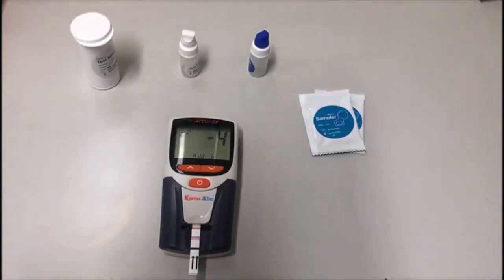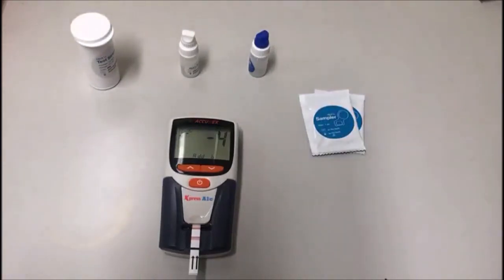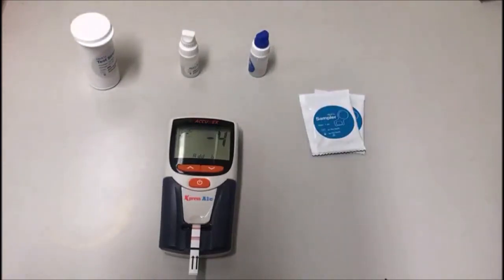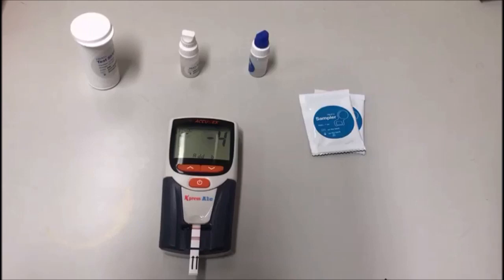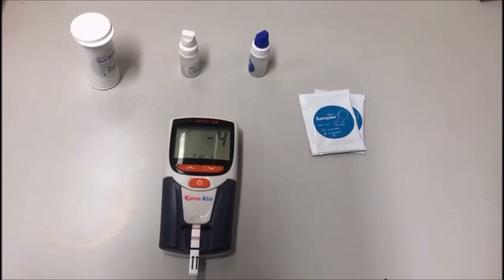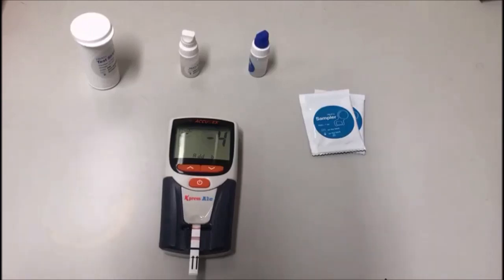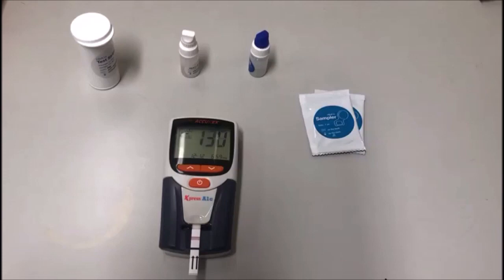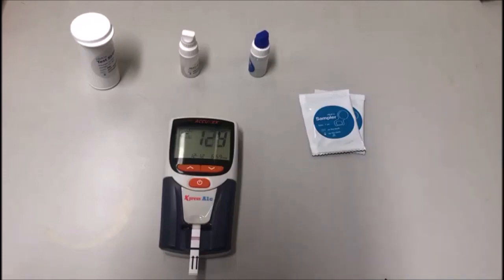After adding buffer B, the system takes 50 seconds to detect. Do not panic. The timer begins.